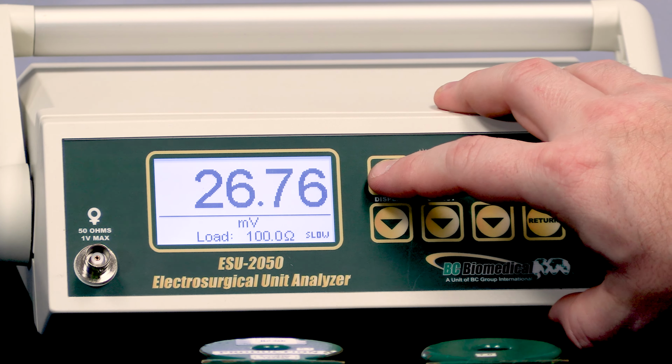If I go into the setup menu, we have options for input range, the input mode. Those are the same settings that were on the quick config screen. This just gives us another place to access those settings. What we'll see in this mode is that when I change the load resistance, it adjusts by discrete values. Now, again, the load resistance is only important if you're measuring watts.